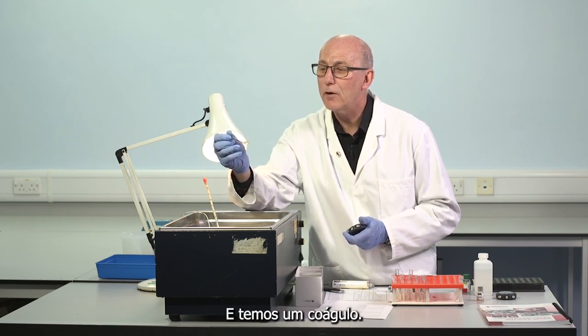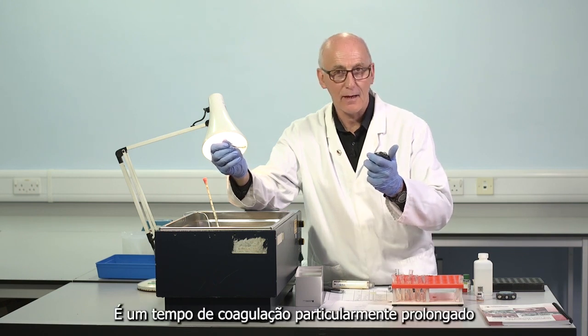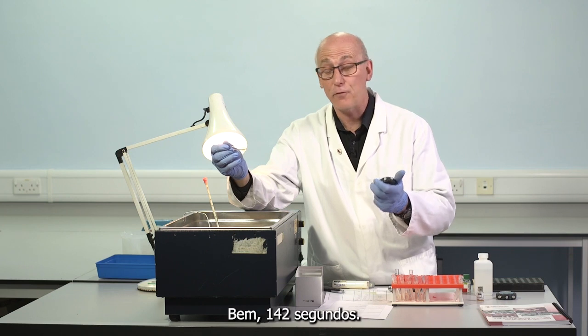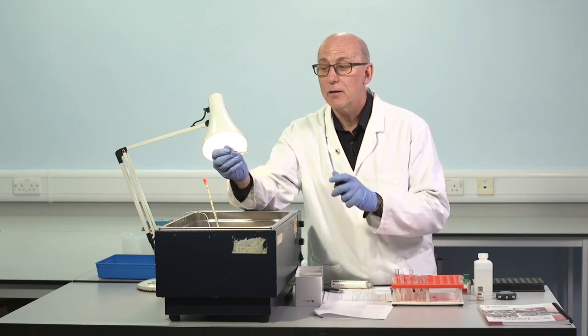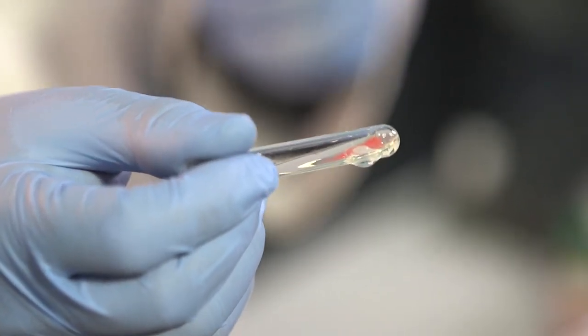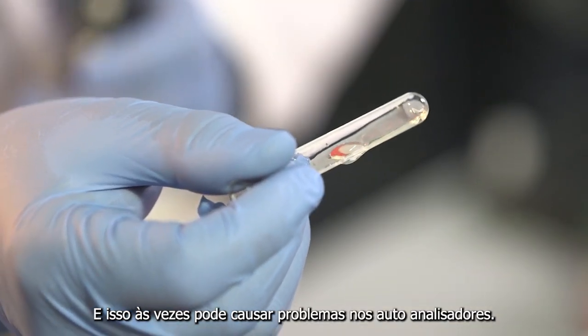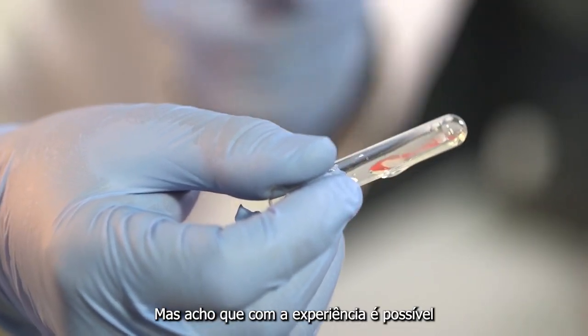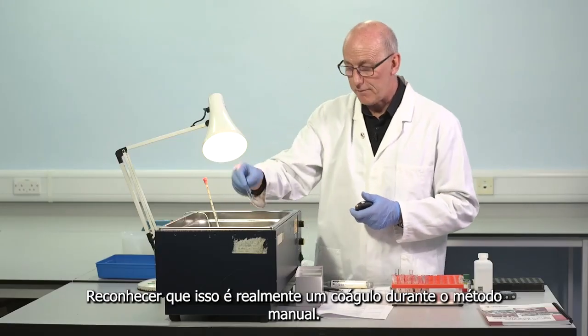And we have a clot. It's a particularly prolonged clotting time, well, 142 seconds. And when it's particularly prolonged, as in this case, the clot is rather weak. It's rather wispy. And that can sometimes cause problems on autoanalyzers, but I think with experience it's possible to recognise that this is indeed a clot during the manual method.